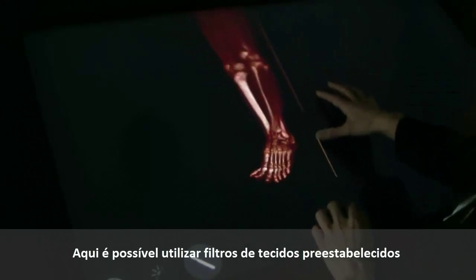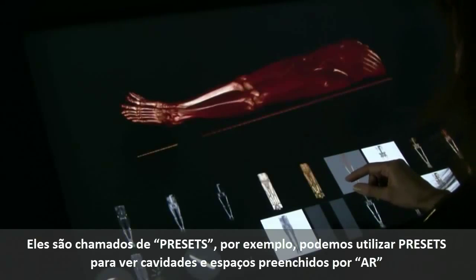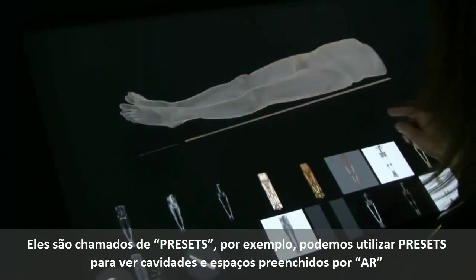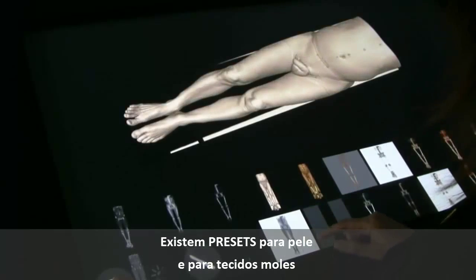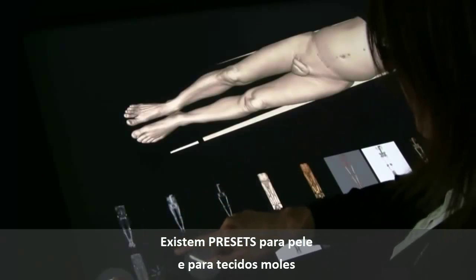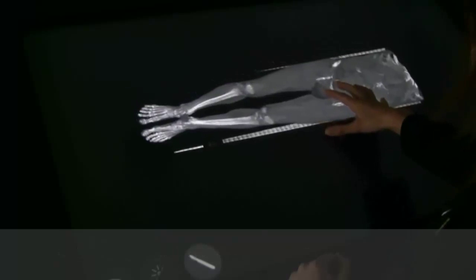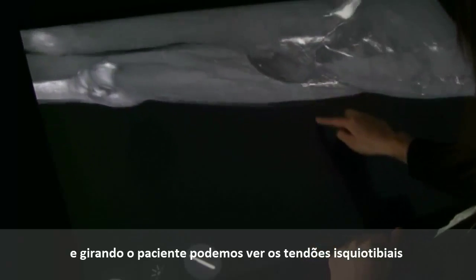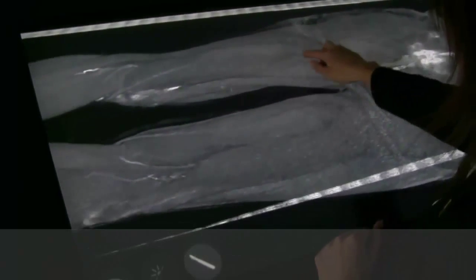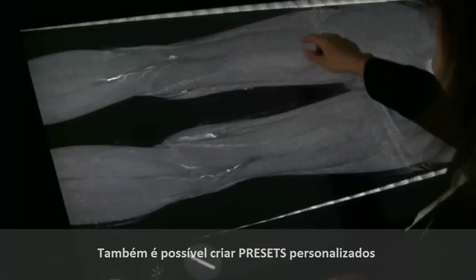You can also use predefined tissue settings. This is called presets. For instance, you can use presets that show the air that's in the patient. Here we see the colon, we can see the lungs. We can also use presets that show the skin. And if I apply a preset that shows the soft tissue, I can see the muscles and the relationship with the skeletal tissue. If I zoom up, you get an overview over the quadriceps here. And if I turn the patient around, I will also get an overview over the hamstring. By the way, the presets can be changed and you can create your own personal presets.